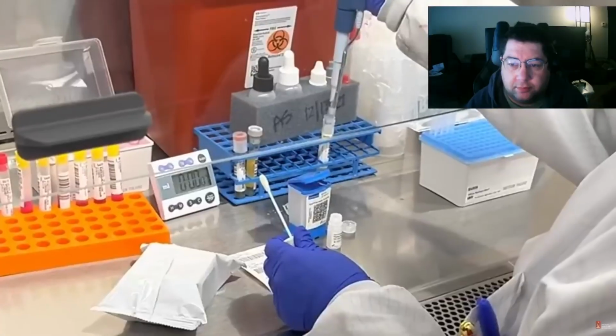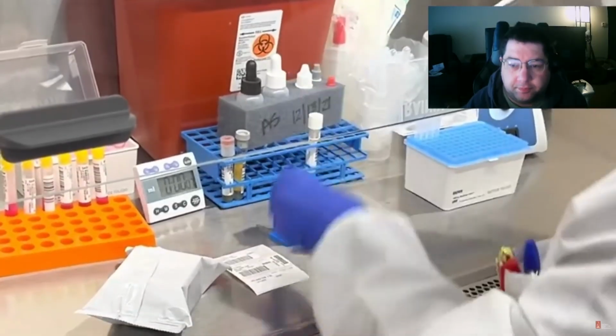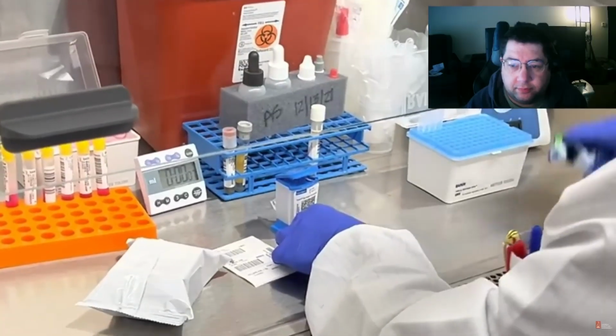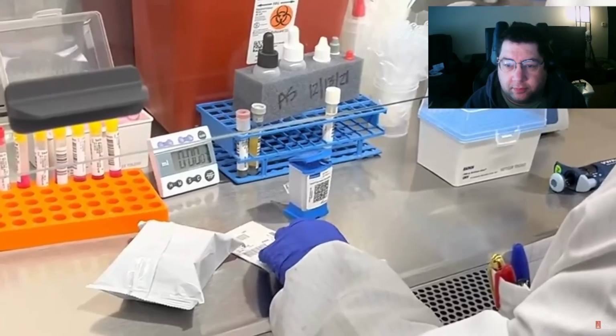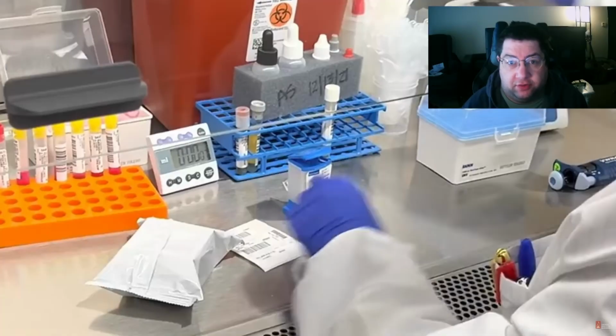In the stat lab, we also perform rapid PCR using the Cepheid system. This detects nucleic acid targets for bacterial and viral pathogens, including Mycobacterium tuberculosis, Staph aureus, Strep pyogenes, COVID, flu, and RSV. So the Cepheid, that little cartridge there in the center here, this really changed the game around when COVID came out. I think they were the first to develop a rapid PCR test for COVID-19.